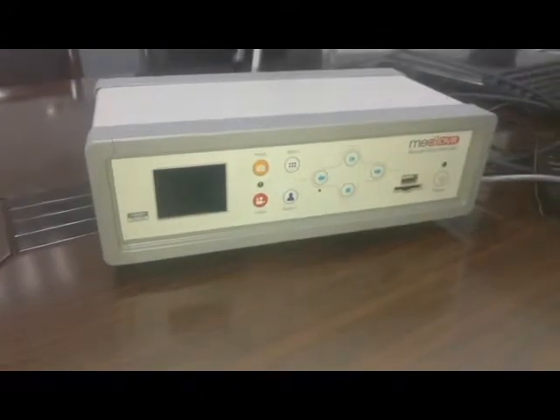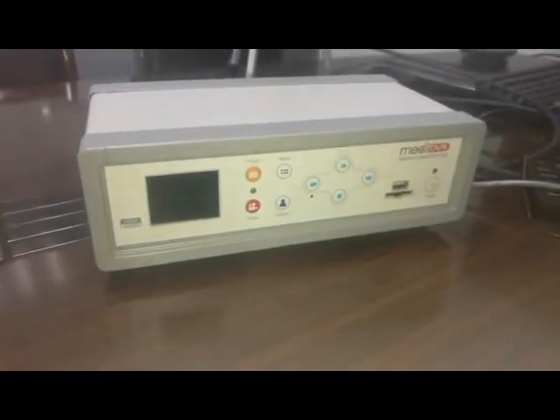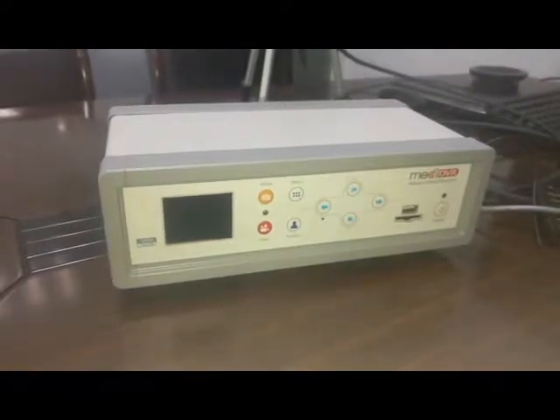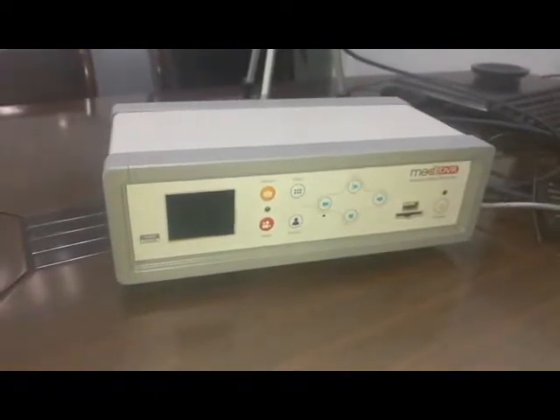Hello, this is a video demo that shows the basic operation of MediDVR provided by Zuvitek. Let's start with the back panel.